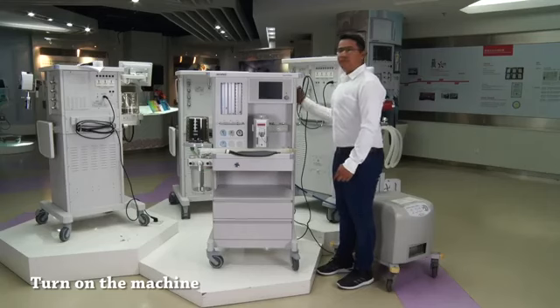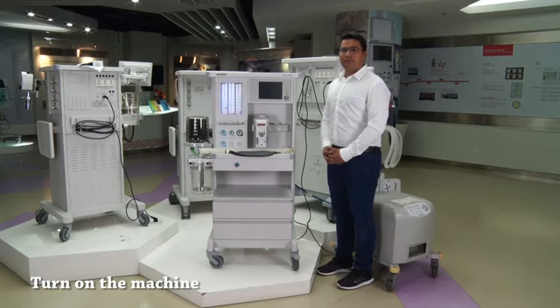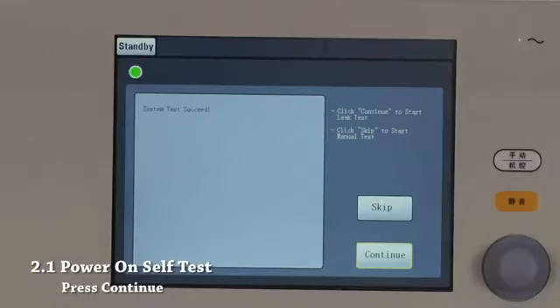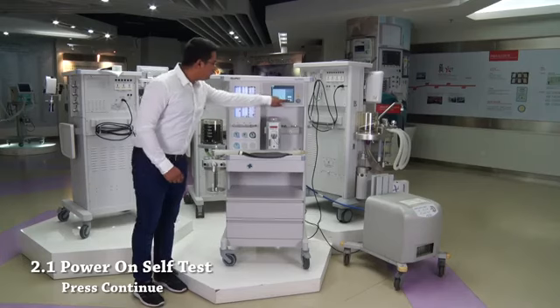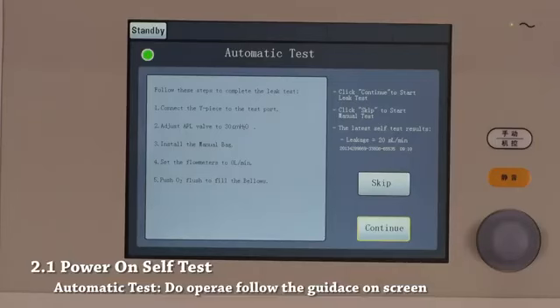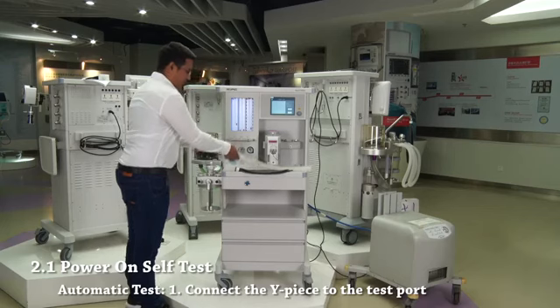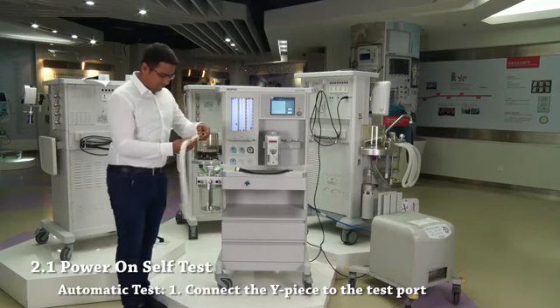Turn on the machine. After turning on the machine, we can perform system self-test. Press continue to go to automatic test page. Please follow the instructions displayed on the screen. Step 1. Connect the Y-piece to the test port.